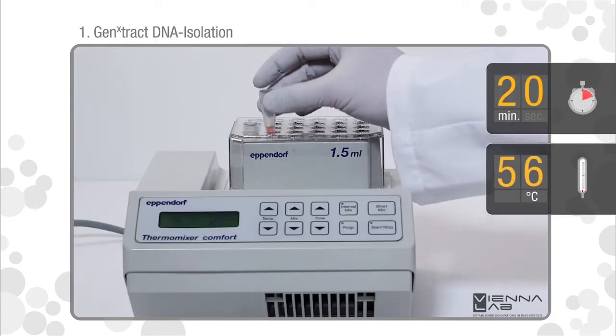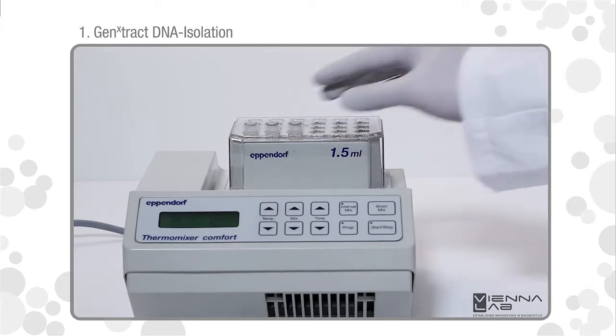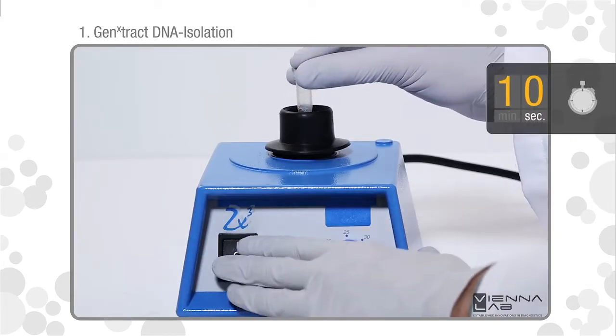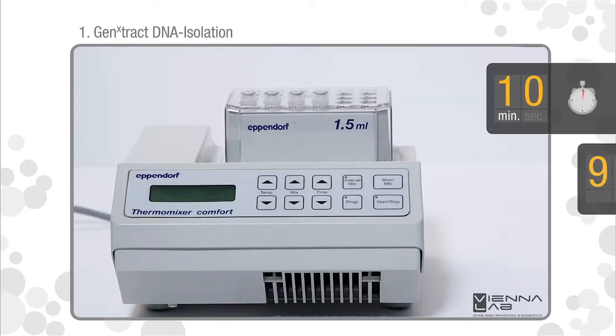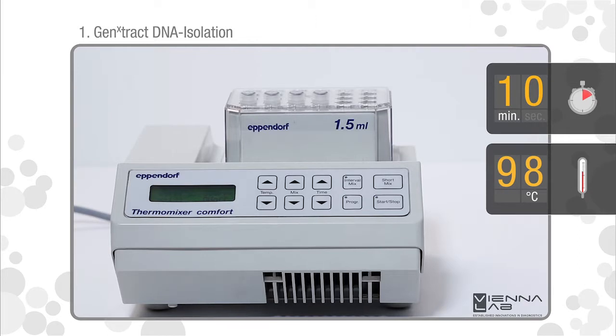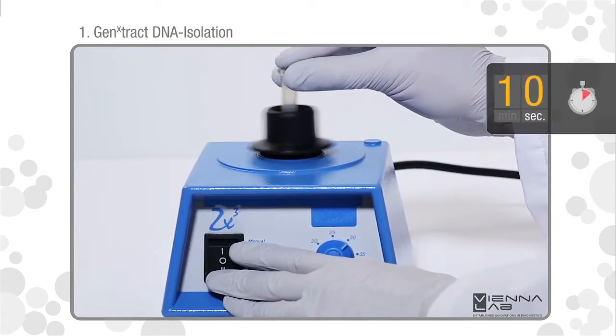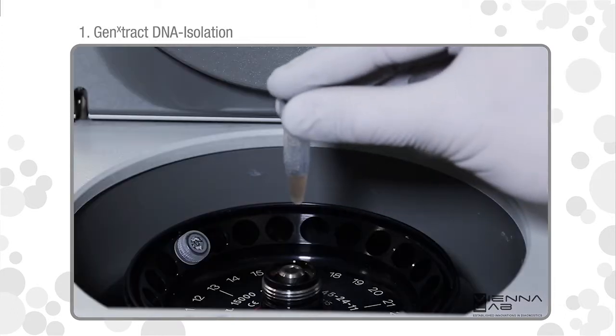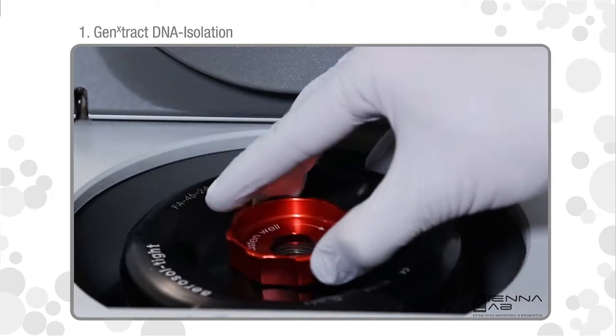Incubate for 20 minutes at 56 degrees Celsius. Vortex for 10 seconds. Incubate for 10 minutes at 98 degrees Celsius. Vortex for 10 seconds. Centrifuge for 5 minutes at 12,000 RPM in a micro-centrifuge.